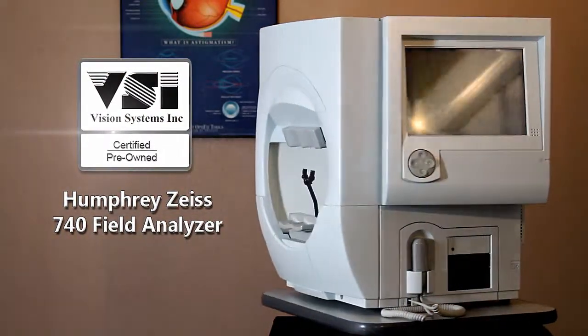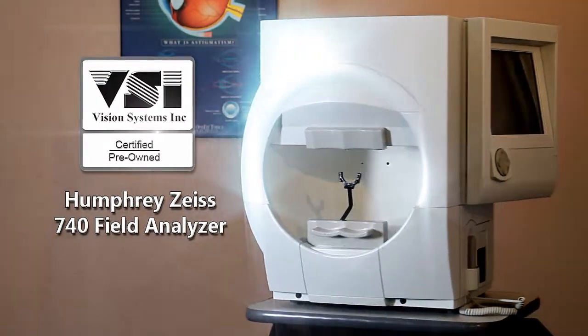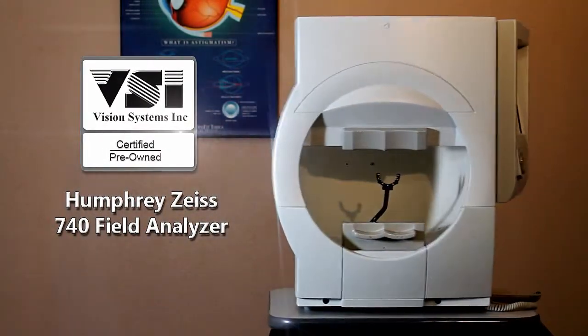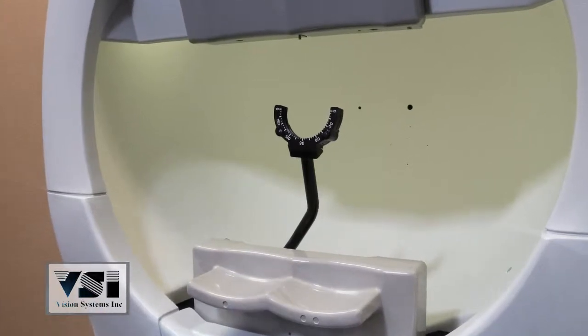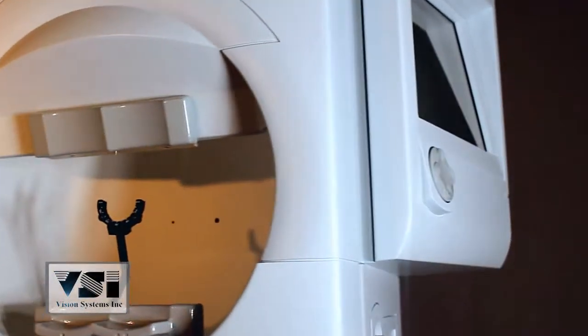Vision Systems presents the VSI certified pre-owned Humphrey Zeiss Model 740 Field Analyzer, completely refurbished to factory specifications and backed by the best technicians in the industry.